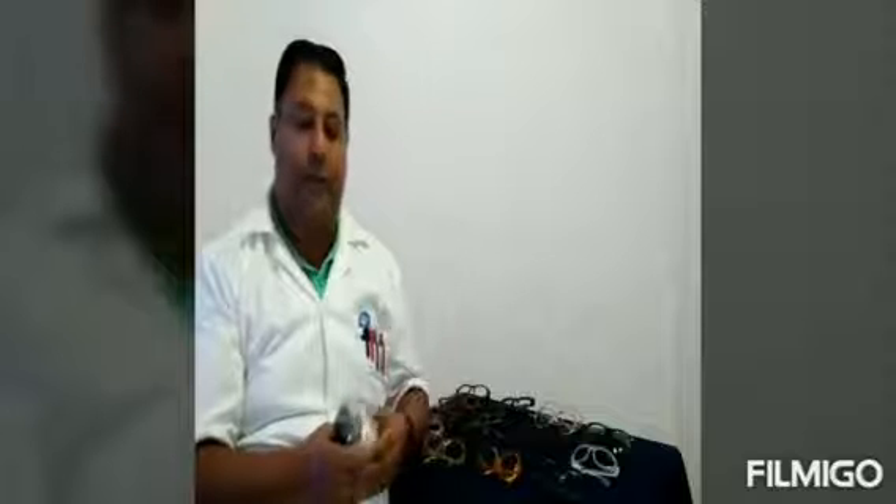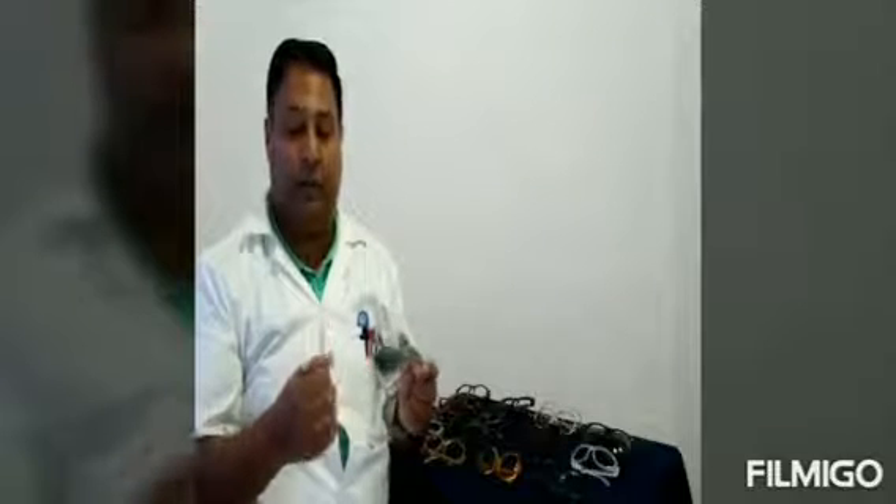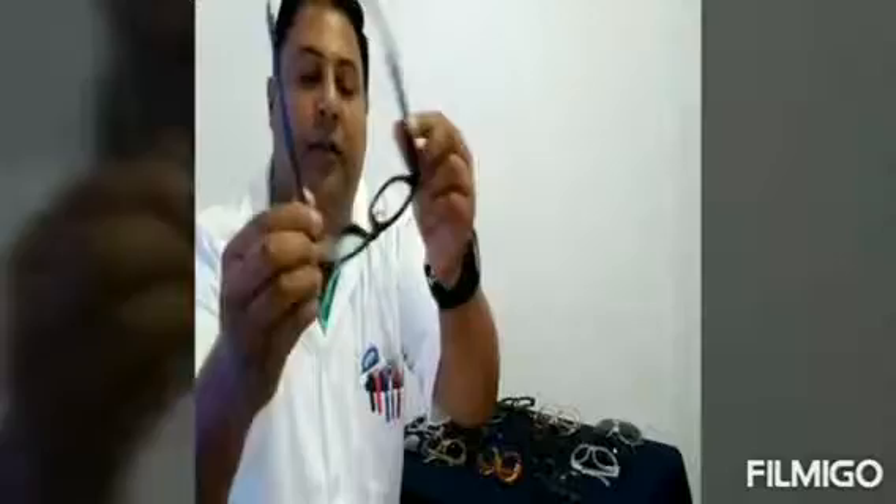In terms of glazing, they have to be heat glazed and frames need to be heated strongly. Lenses need to be fitted on size. Large lenses could result in breakage of the frame or the lenses, as you cannot string or stretch another frame. Just to show you some other nylons before we go to the next one — this also has plastic hinges here, and this is a sunglass here, also with plastic hinges. That concludes nylon.